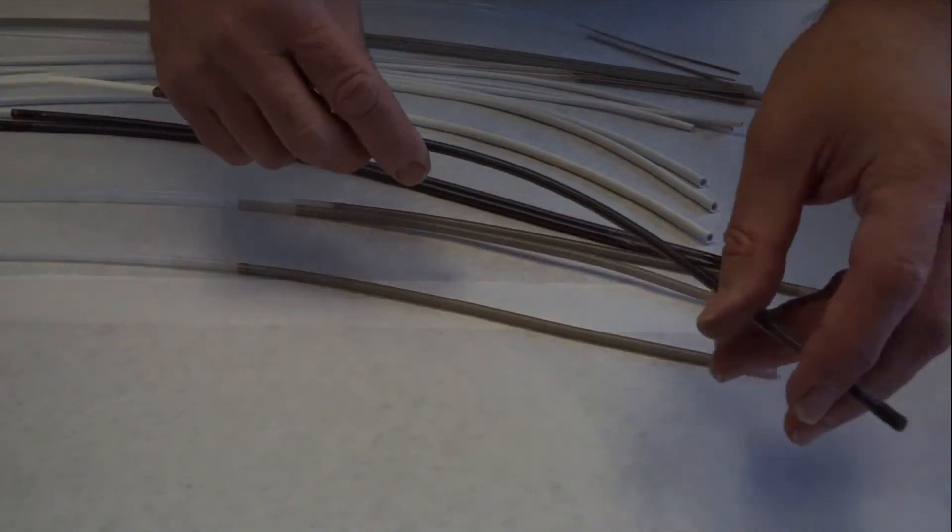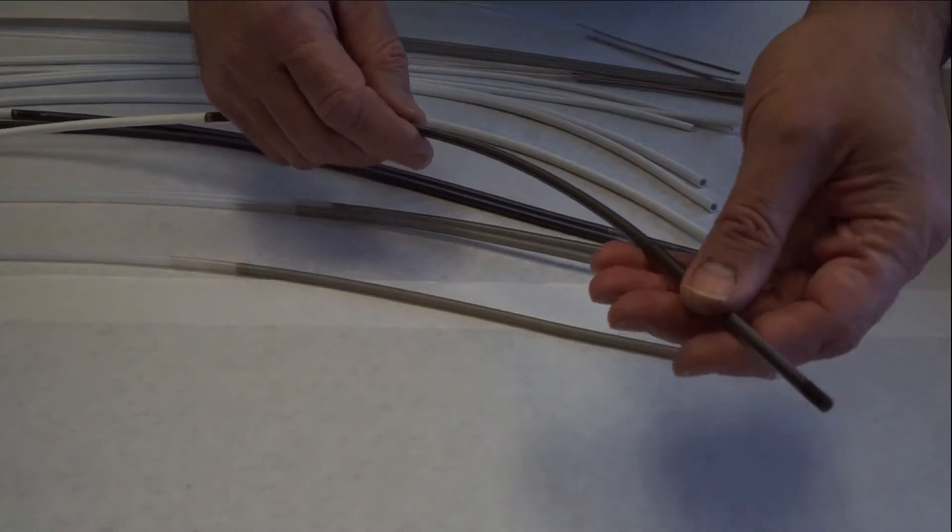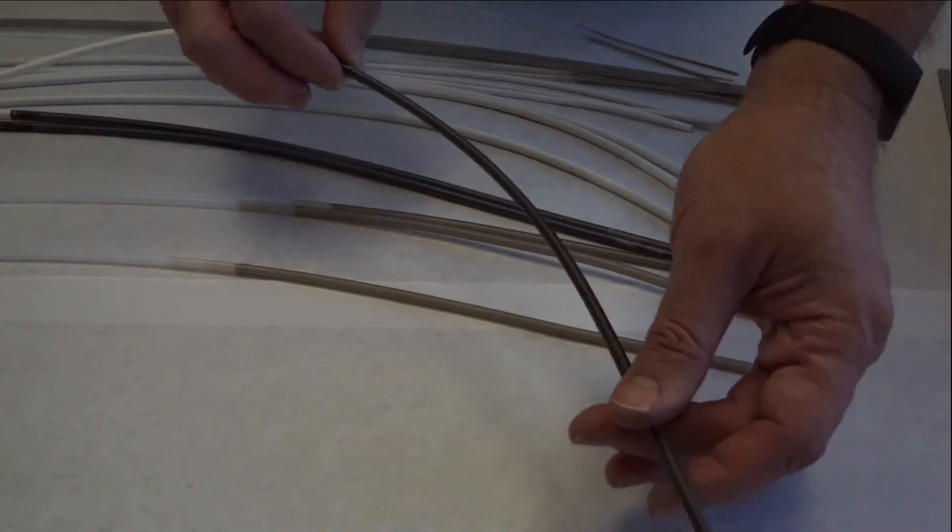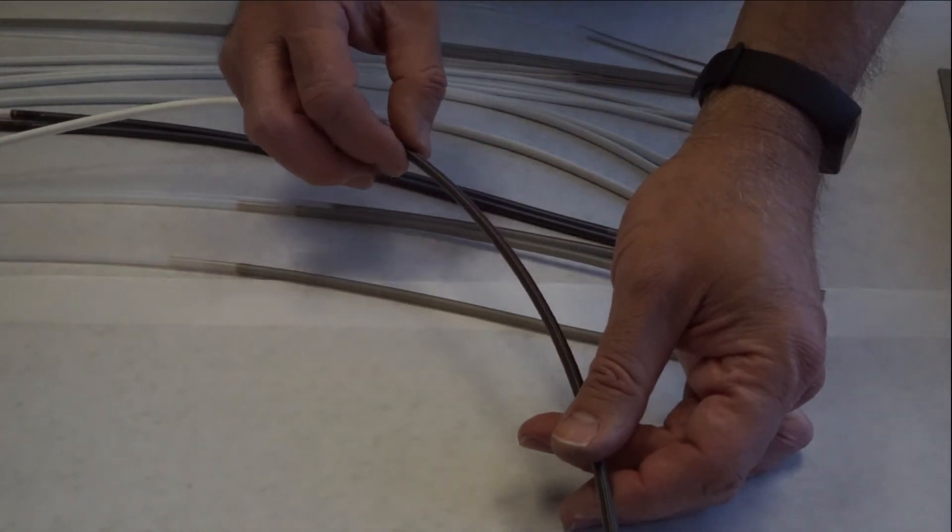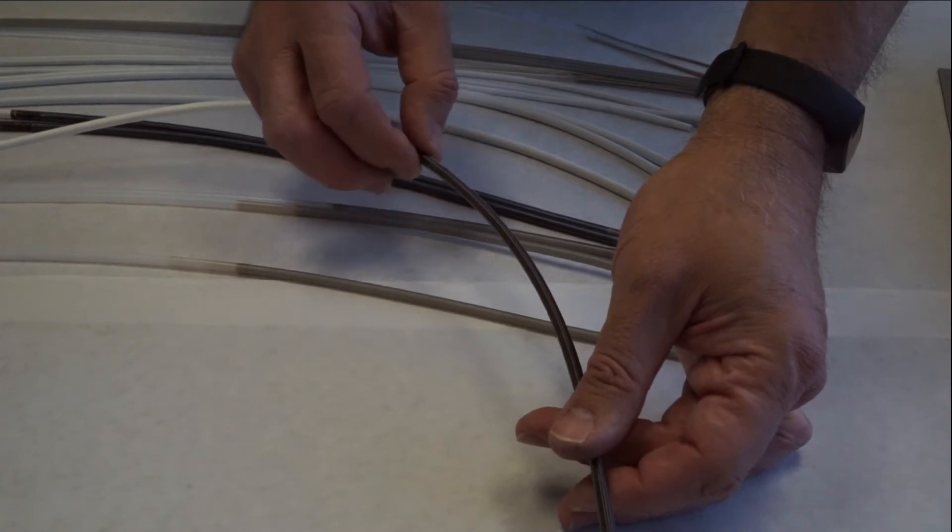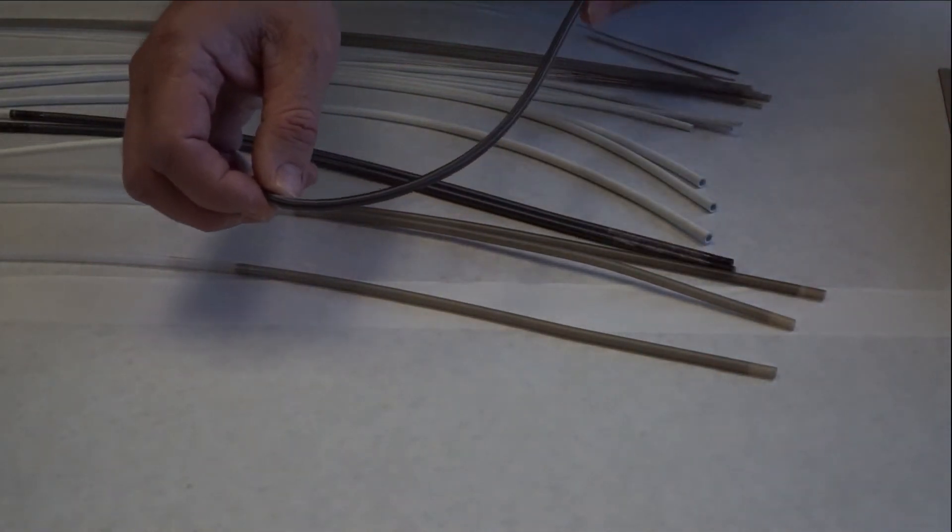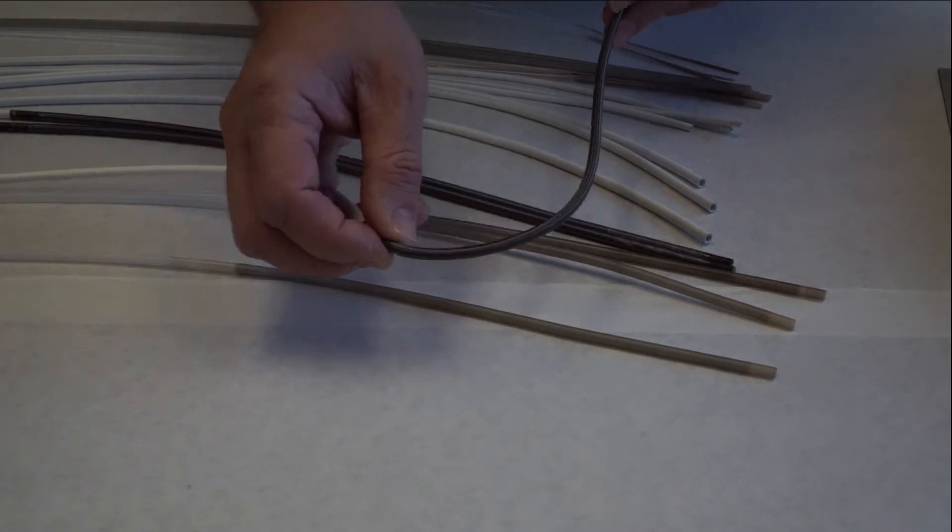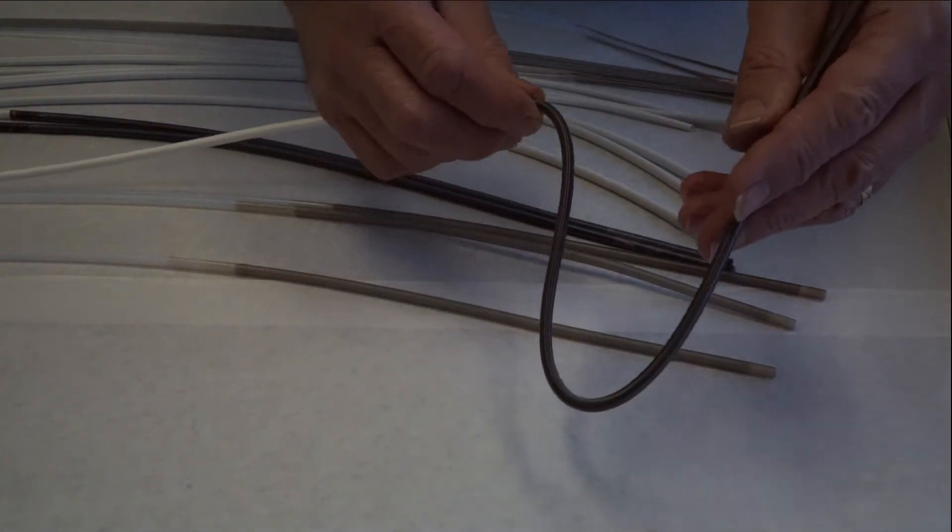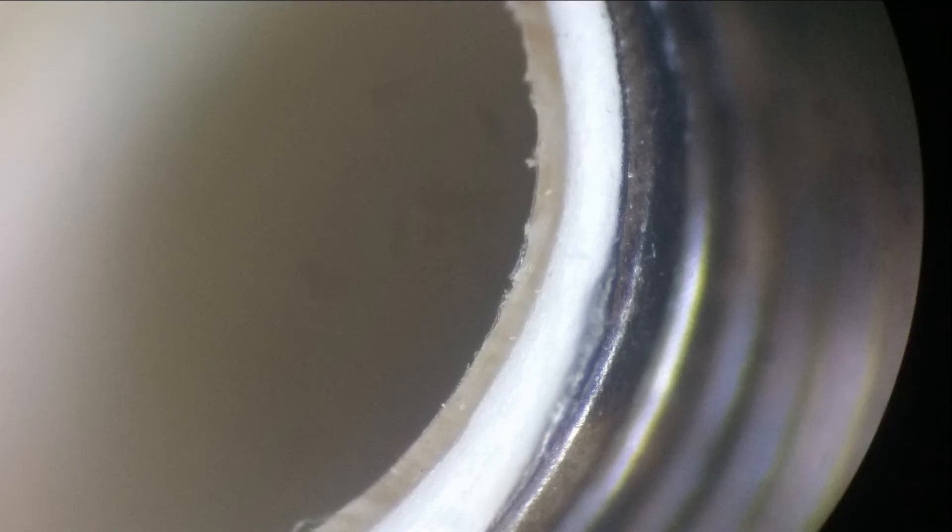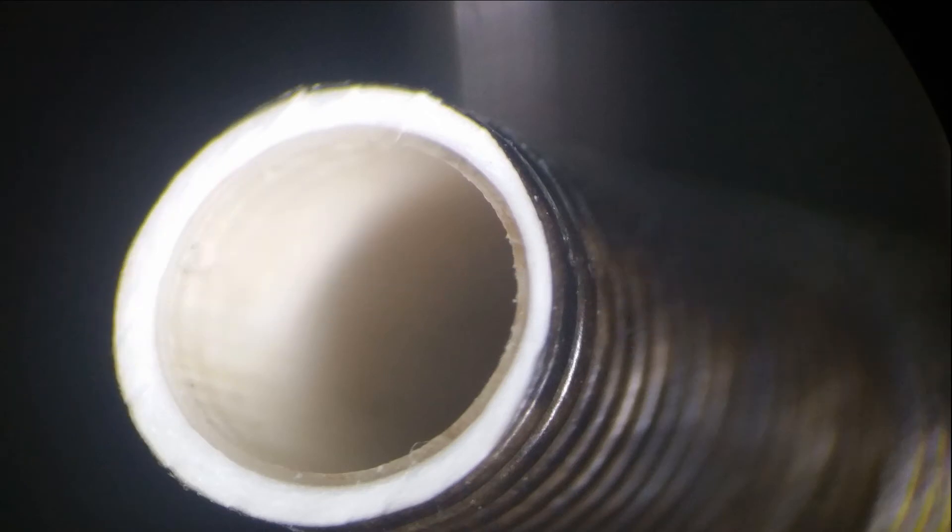The channel is constructed this way because the extra-long wire wrap goes past the kink problem area just behind the coil pipe mount up to the 30 centimeter mark on the insertion tube where most of the flexing occurs during procedures. The inner wall of this channel is made of a higher durometer PTFE to aid in gouging resistance and provide a smoother biopsy tool transition. The outer layer is made of a low density ePTFE layer which helps maintain the channel stability.